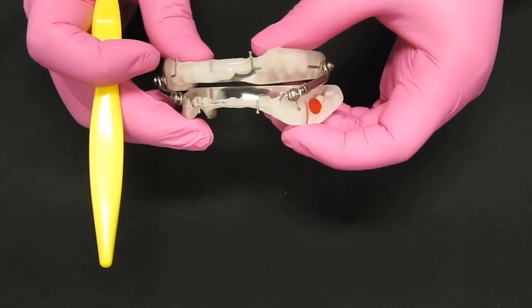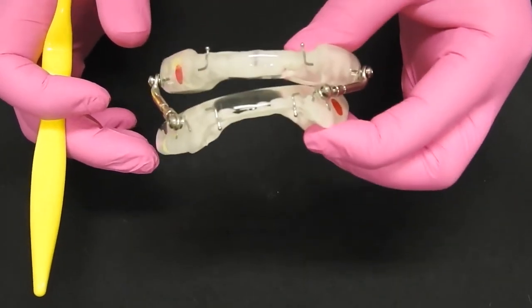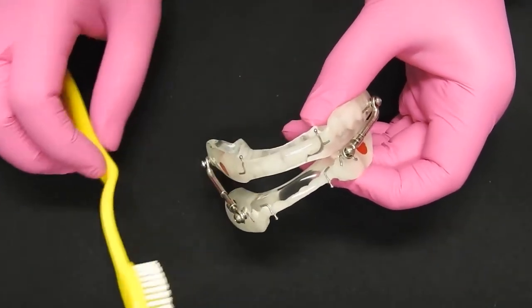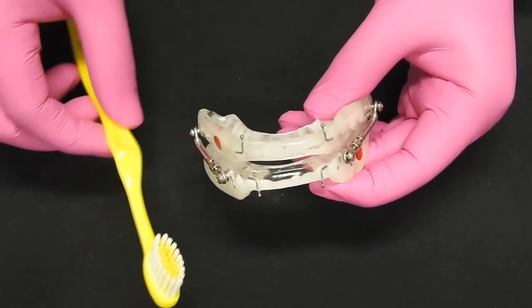Make sure you're holding your device with two fingers. This is to be done daily.